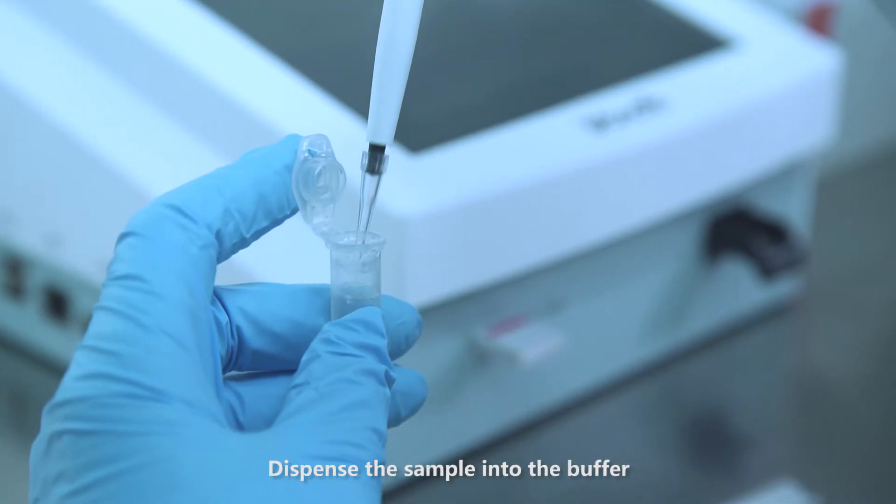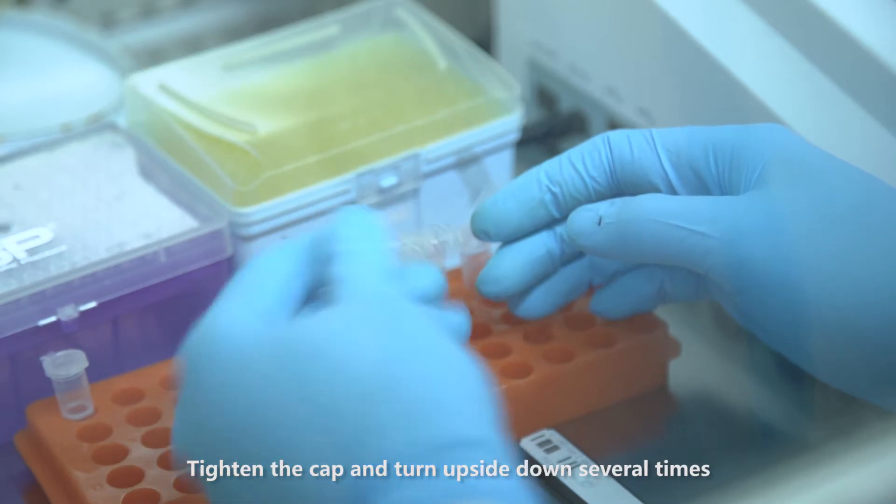Dispense the sample into the buffer. Tighten the cap and turn upside down several times.